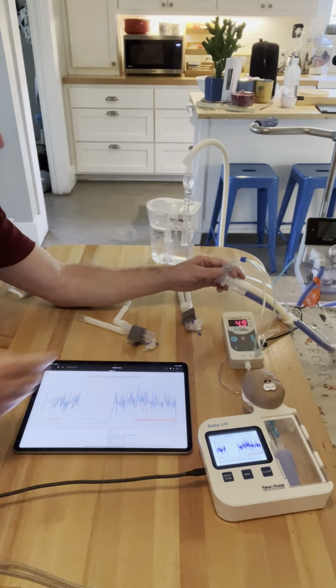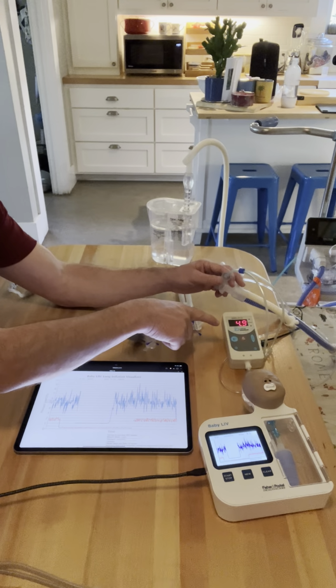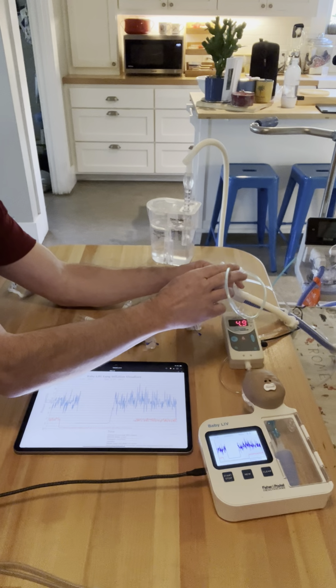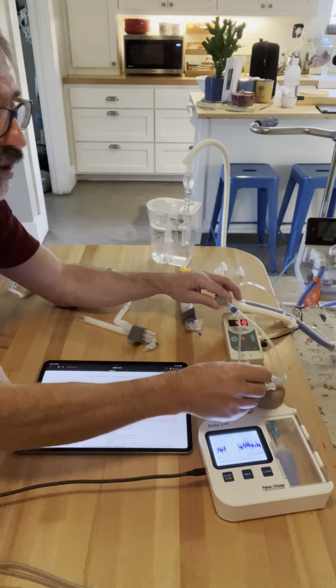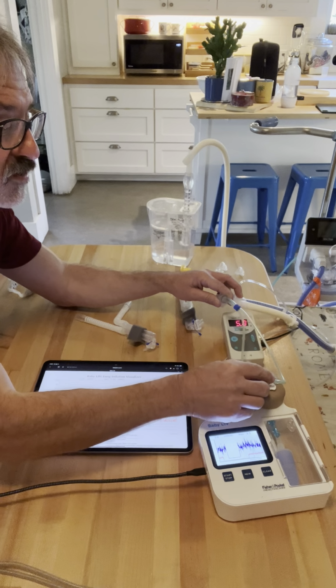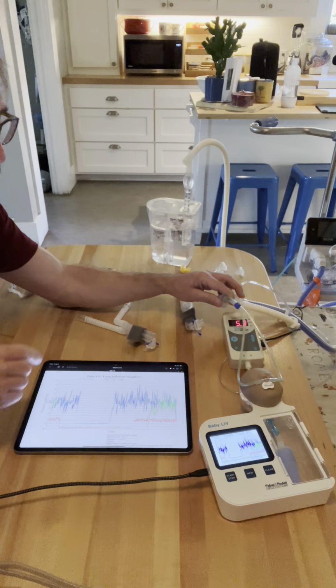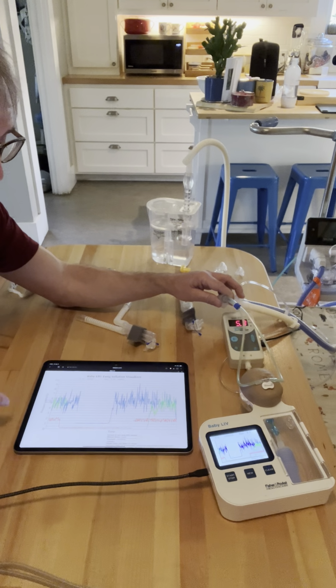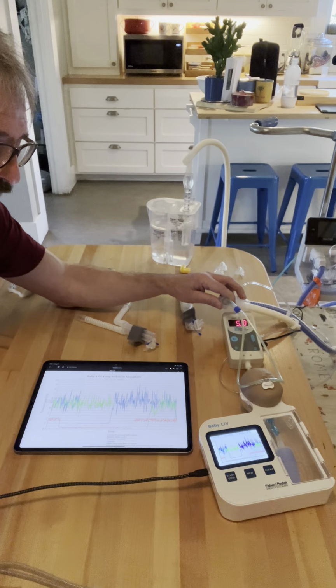So this one comes in at 90%. So I plugged in the blue cannula, and it's still reading at 4.9, even though the blue cannula is larger than the green, and it is still bubbling. But I do have a larger percentage of occlusion of the nose. And as soon as I plug it into the nose, the bubbles are a little bit more vigorous. And then you'll notice that the CPAP in green is now close up to 5. That seems to be working, right?